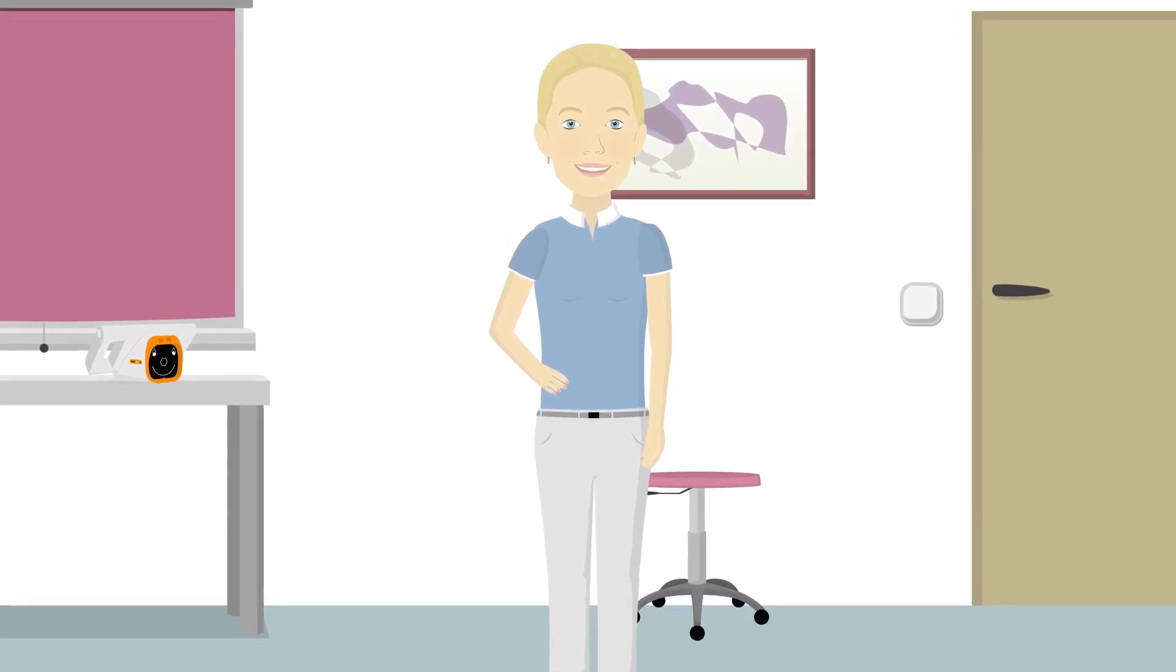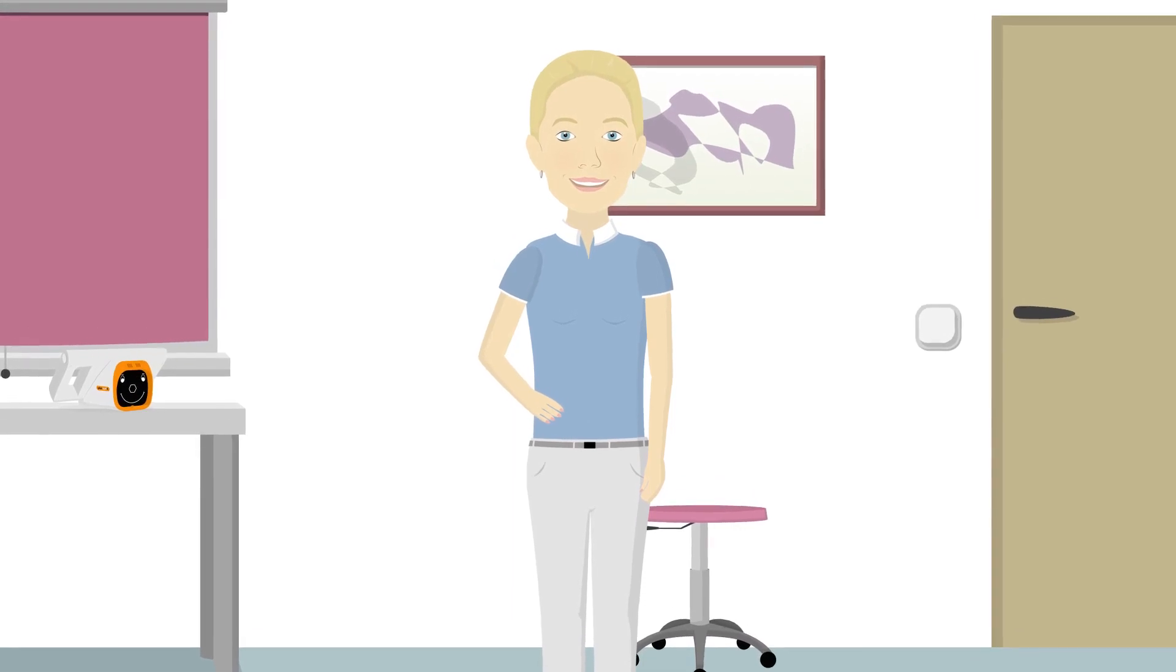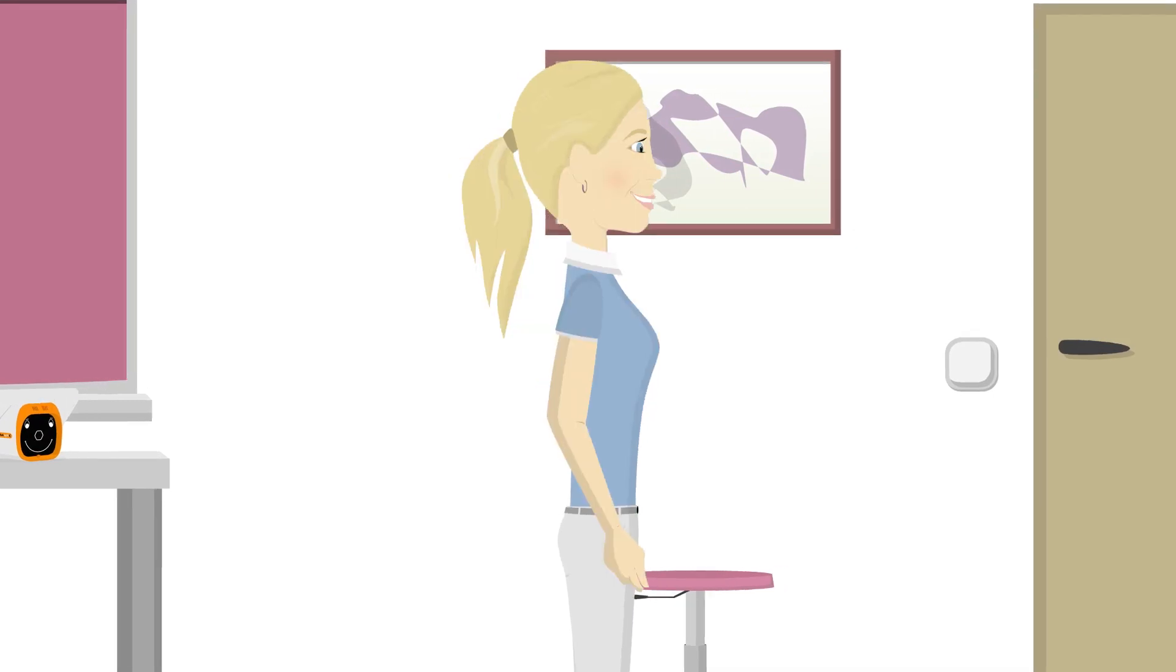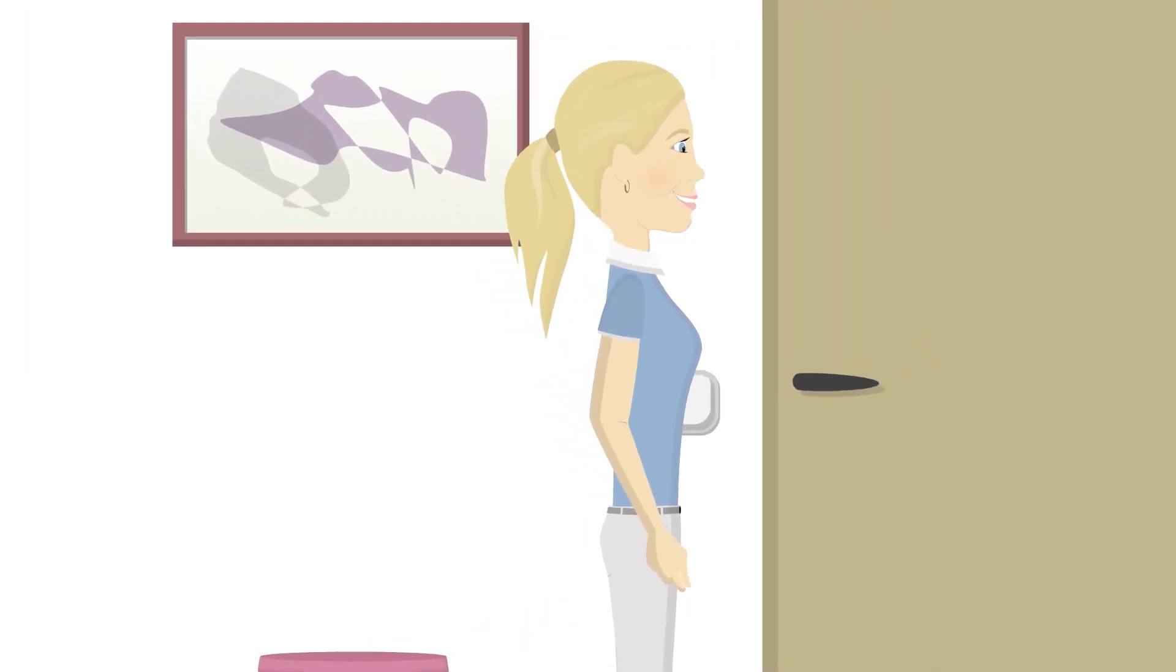Anna has properly adjusted the light in the room and distractions have been removed. The PlusOptics S12 vision screener has been turned on. She is ready to bring in the first child.